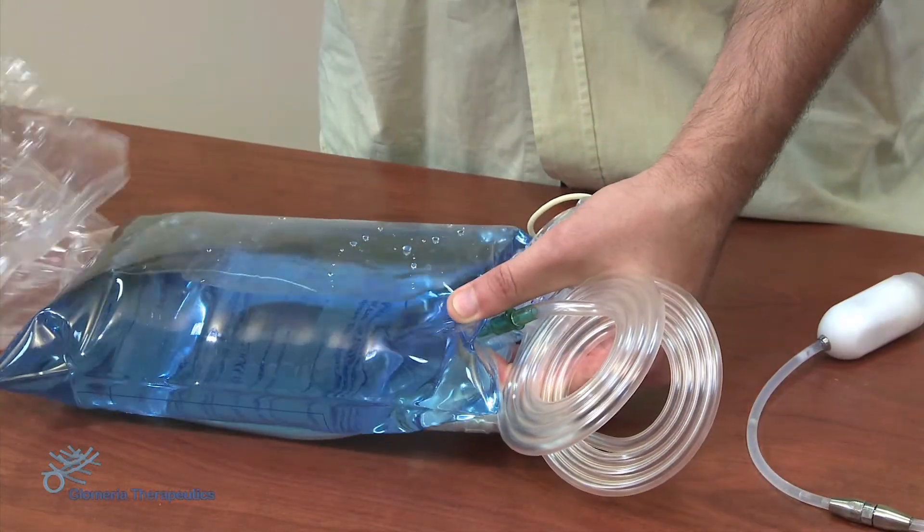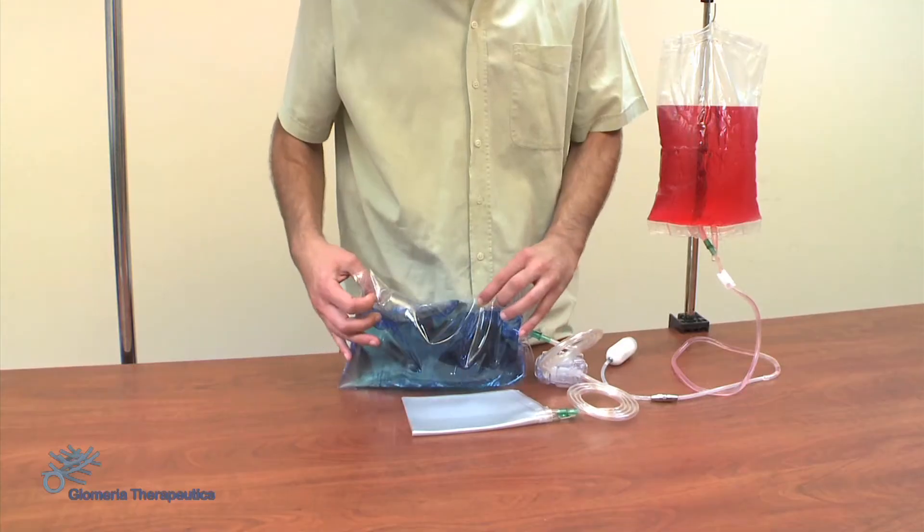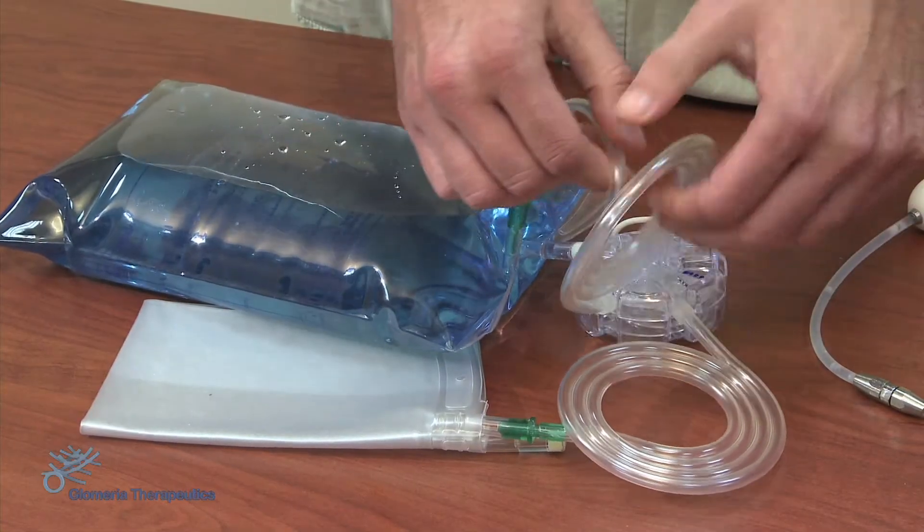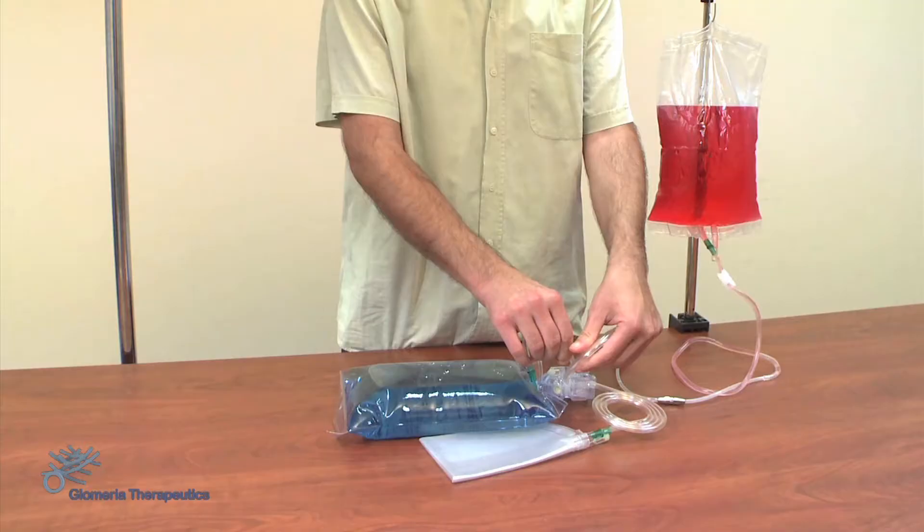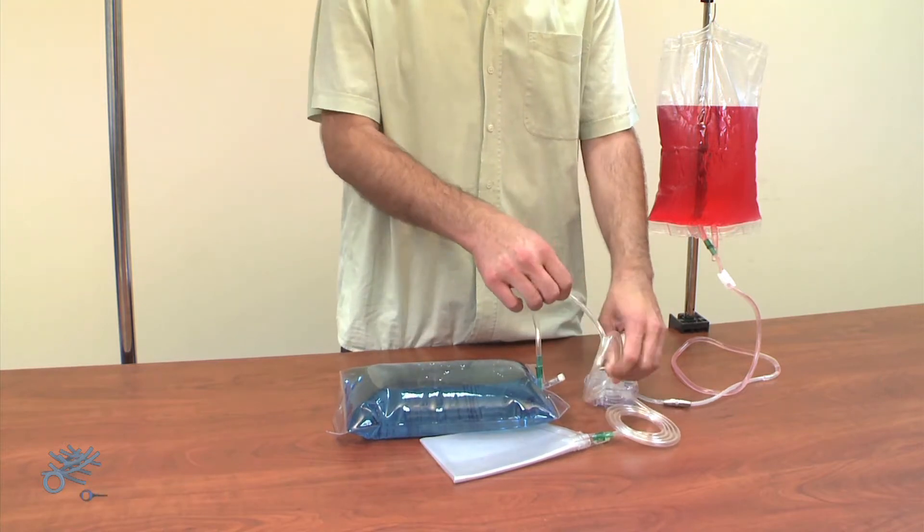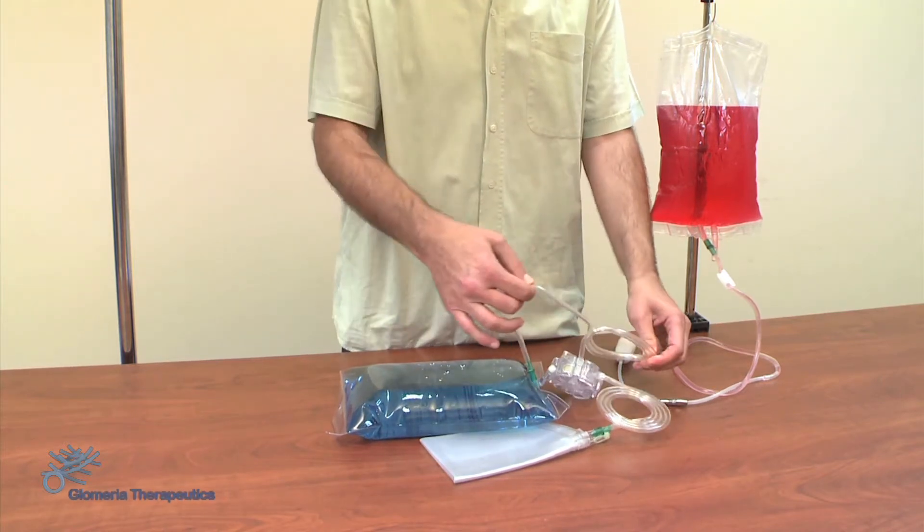Demonstration of the new Desmoconnector usage cycle. These images, taken for explanatory purposes, didactic, schematic, and popular, using a fake peritoneum full of a red-colored dialysis solution, show a bag changing procedure with the Desmo system.